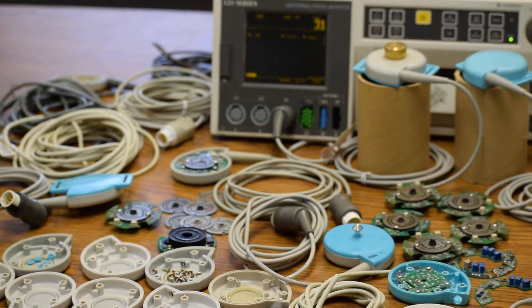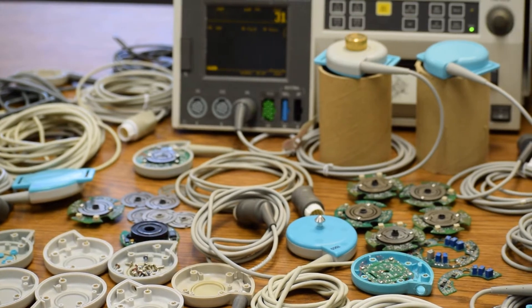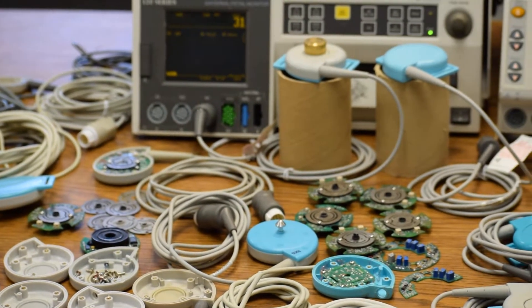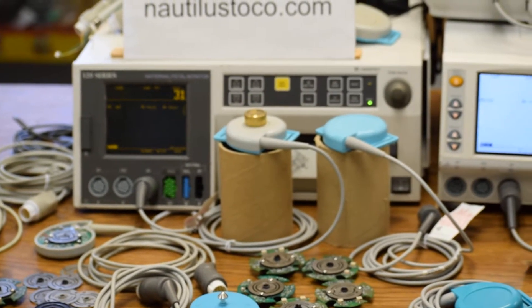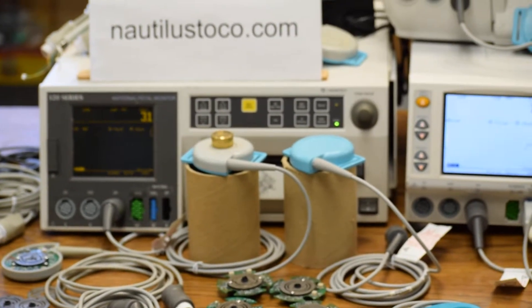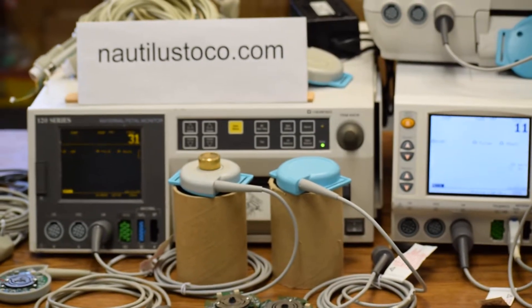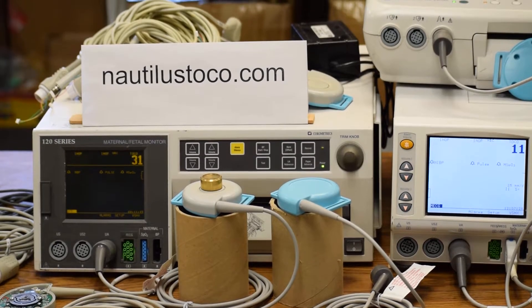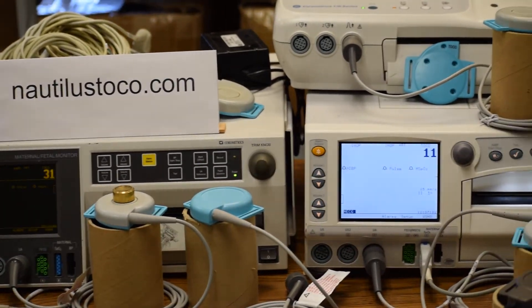Being a technology-oriented company with top-notch core competencies and commitment for excellence, our clients get the best in the world and are fully covered. The proprietary technologies and processes are environmentally friendly, and all developments are done in the U.S. Let us show you how this transducer works.